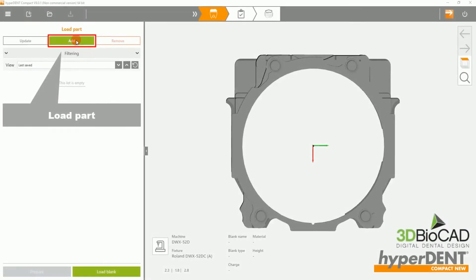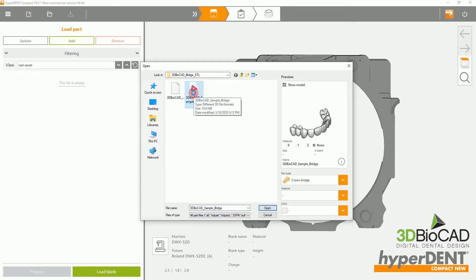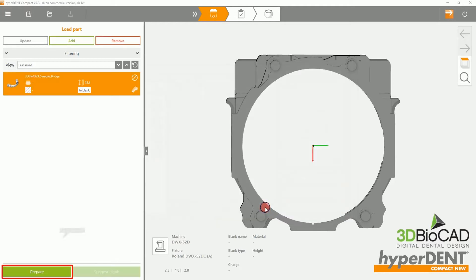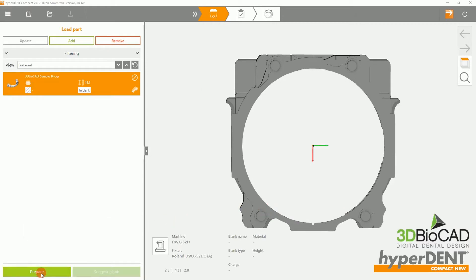Please select the Add to load a part, then select the desired file. In this case, we will be using a sample bridge, part type crown bridge. Then select the Prepare button to prepare the part.